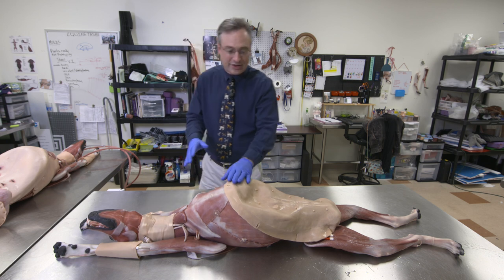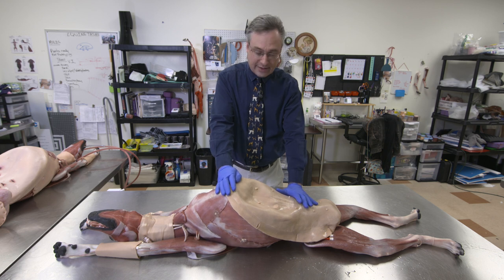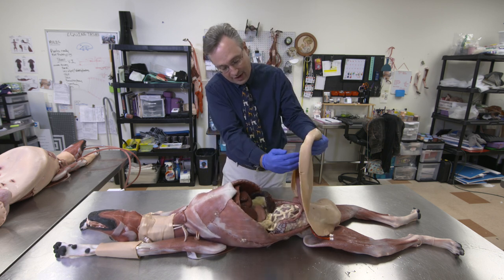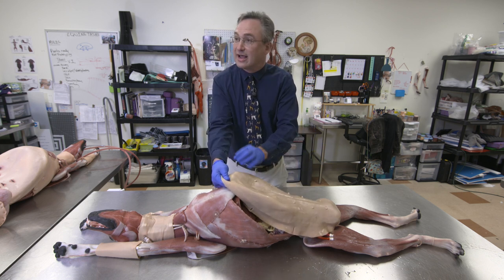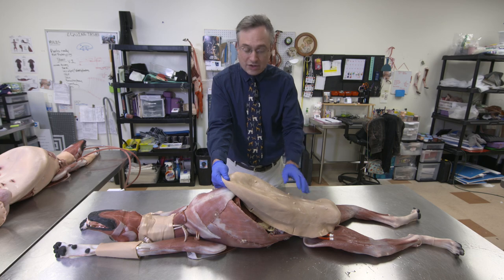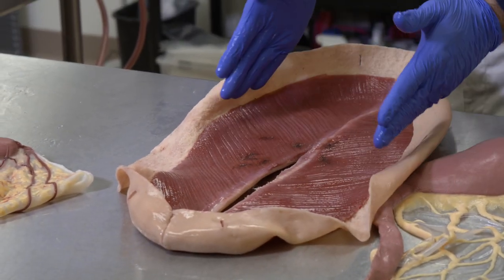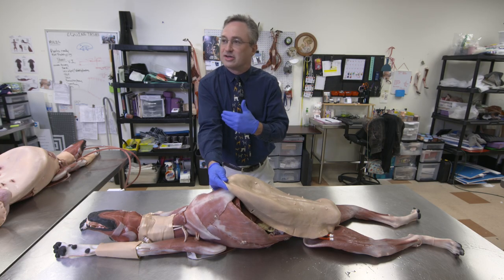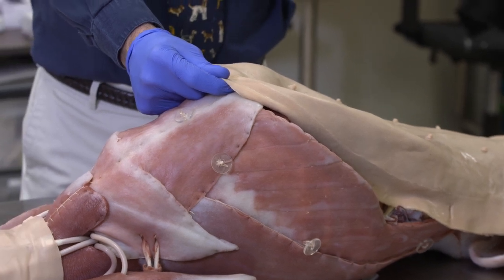Going down to the surgical consideration, we do have a surgical — they call it the abdominal skin plate. It has in it a linea alba, a central area that allows surgery. The muscle, skin, fat, and fascial layers are all present so that as a surgeon, if you cut appropriately, it kind of guides you. And that's really what we were attempting to achieve here — as the surgeon goes into the abdomen, you want to have it guide you as to what needs to be done.